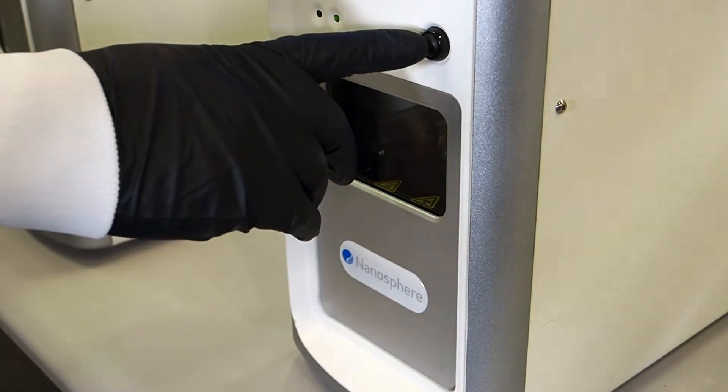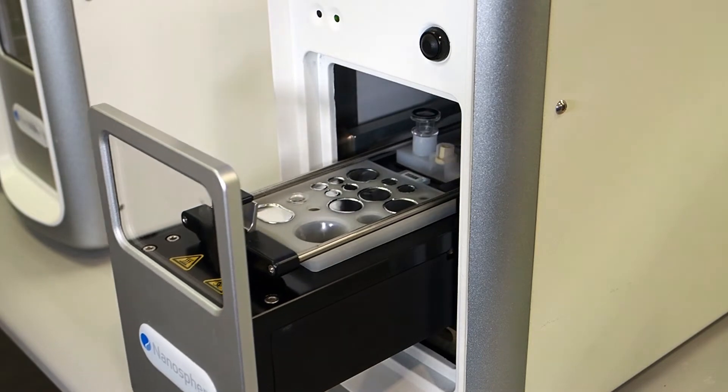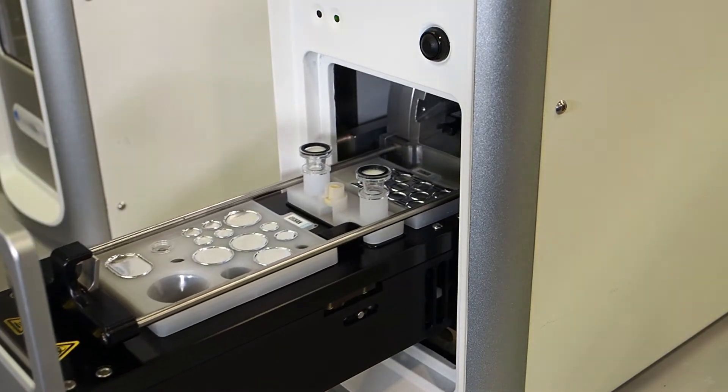The reader will notify the user when processing is complete. Open the drawer assembly by pressing the open close button.